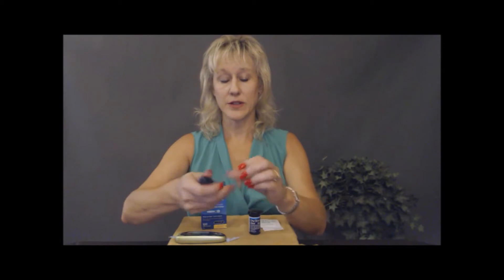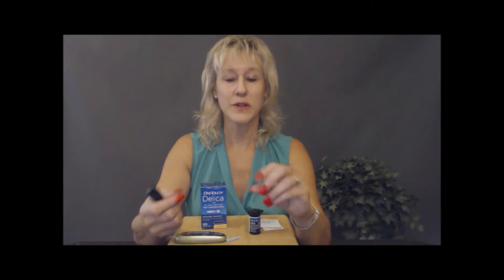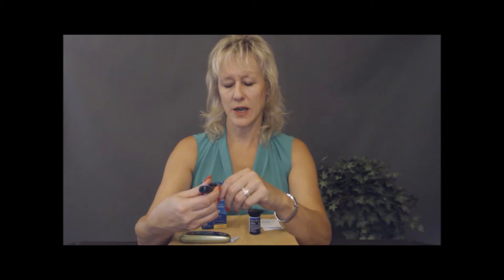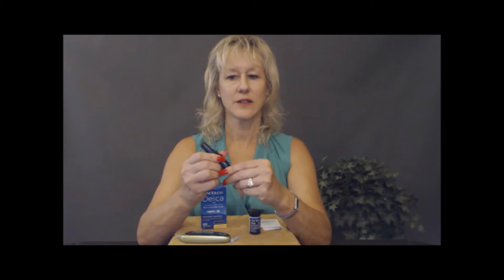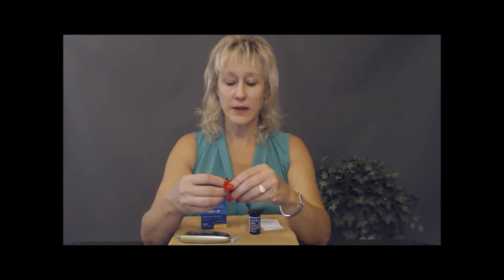So now we're ready. When you get the drop of blood, do not put it right in the center of the pad of your fingers because we use that all the time — so don't hurt yourself. Slightly off to the center is where you want to get your drop of blood. Now, the OneTouch has a little lever numbered one through six on the bottom, and that indicates the depth that the needle will come out to prick your finger.